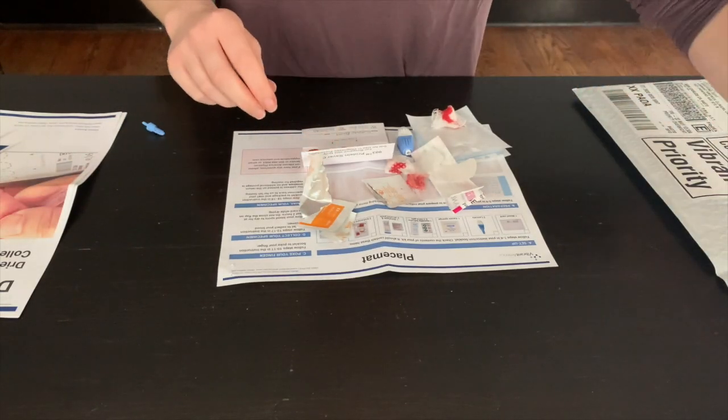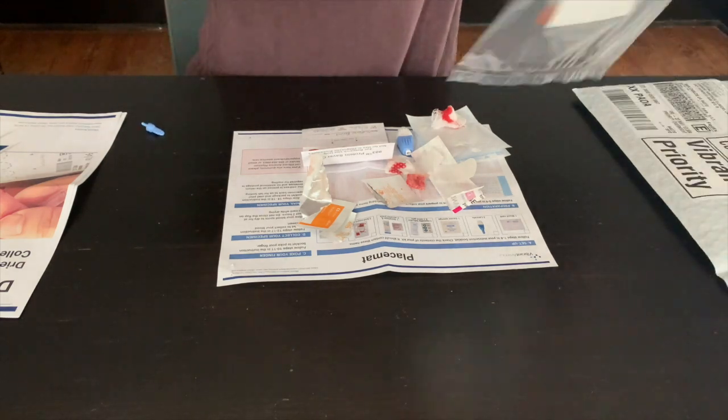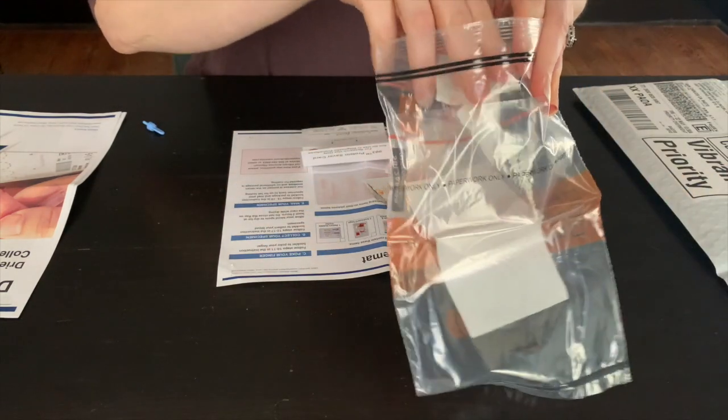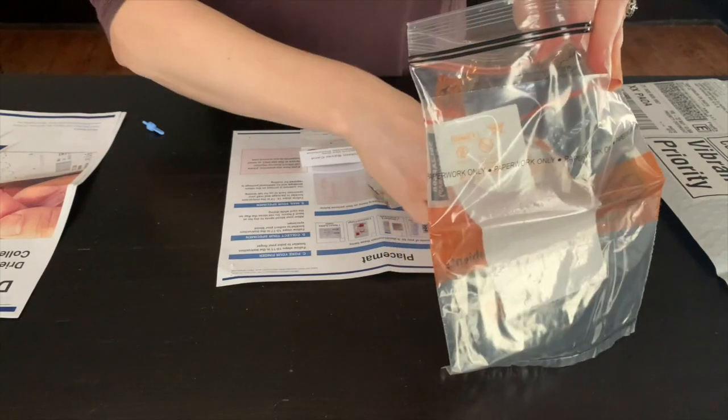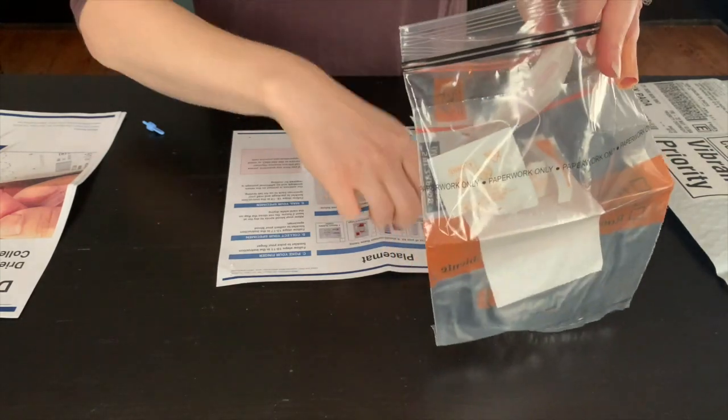Put the used lancet, alcohol pads, and gauze sponge in the additional biohazard bag. These will need to be returned to the laboratory for safe biohazard disposal.